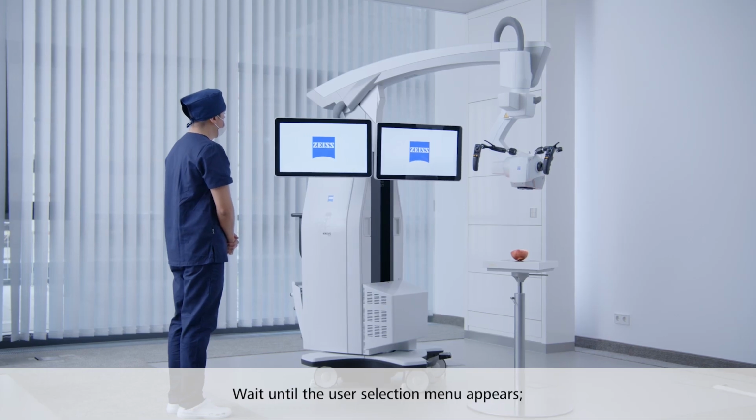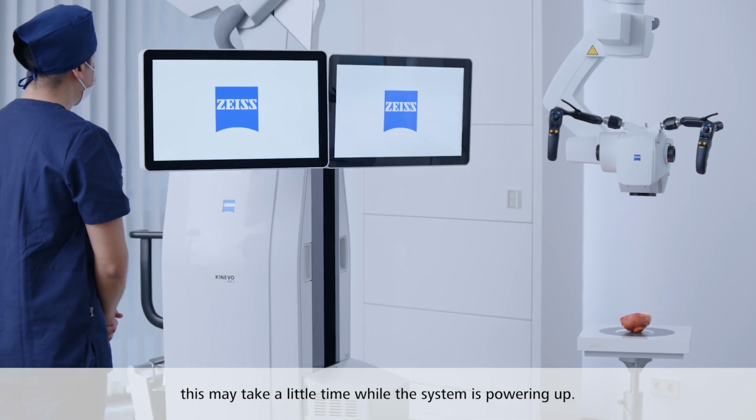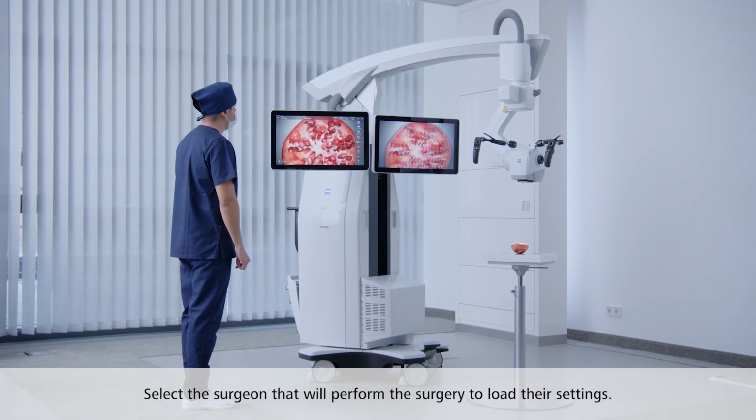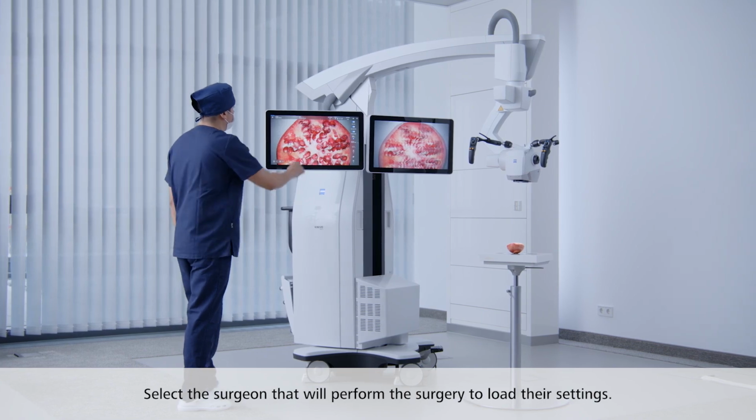Wait until the user selection menu appears. This may take a little time while the system is powering up. Select the surgeon that will perform the surgery to load their settings.